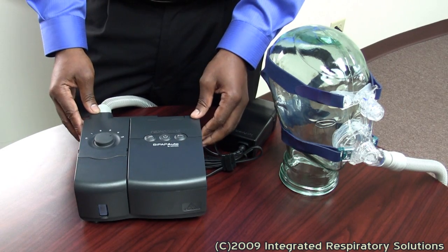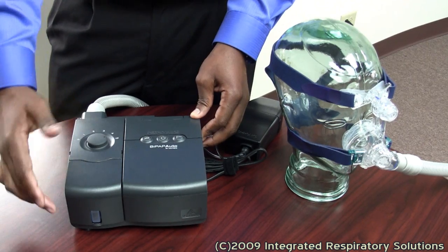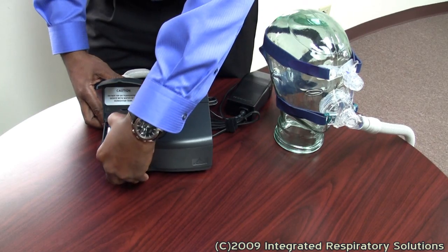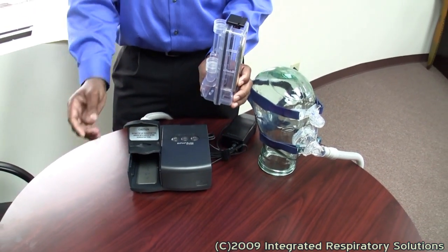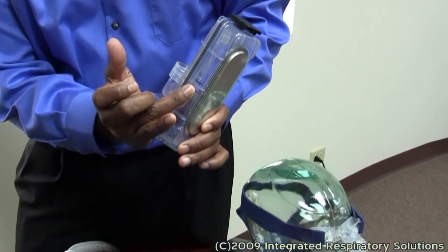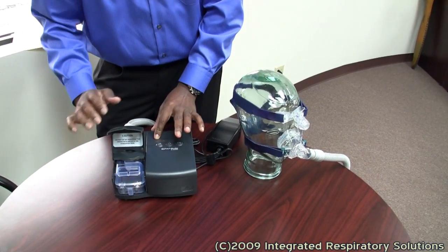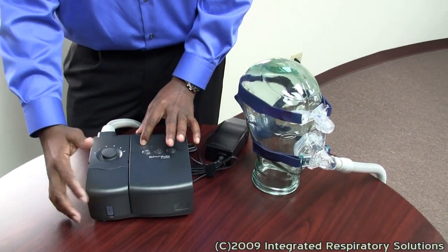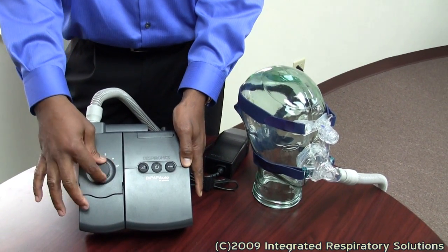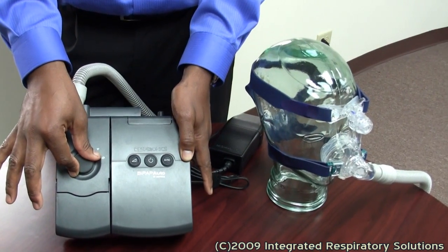These are the components of your BiPAP device. The humidifier houses a humidifier chamber — this piece is pulled out and is often filled with distilled water through this opening up to that line. It adds moisture to the airway, preventing dryness while you sleep. To control the level of moisture, you simply turn the humidifier dial; the higher you turn the dial, the more moist the air is.